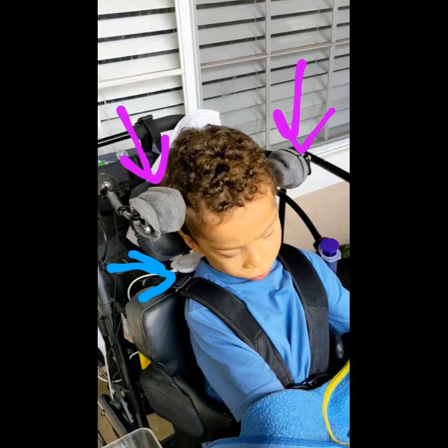When you are watching the videos coming up, you will hear two different voices. The first voice has a lower volume. This is the voice coming from the auditory prompt speaker telling him which word he is on. When he selects his desired word, you will hear a louder, more distinct voice coming through the main speaker on the back of his communication device. The word that is said in the louder voice is the one that Tyler wants to tell you.